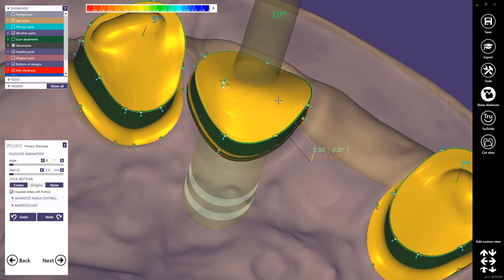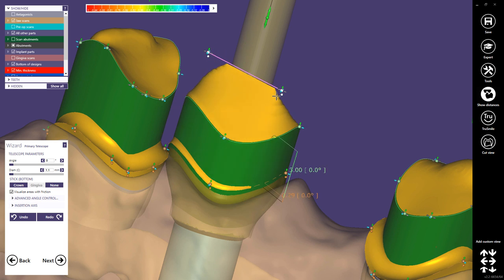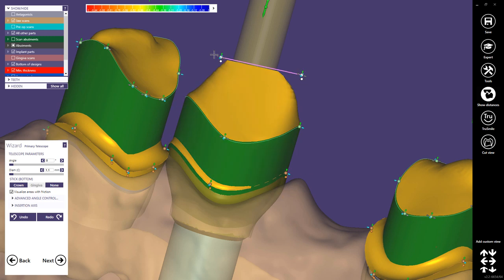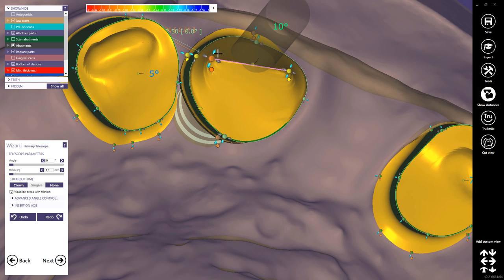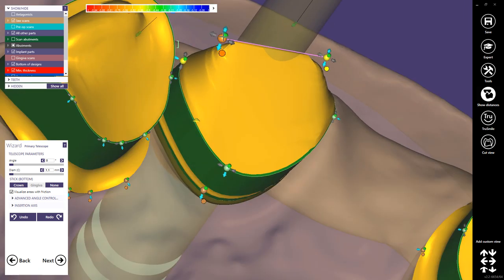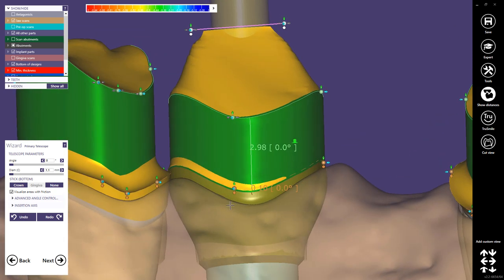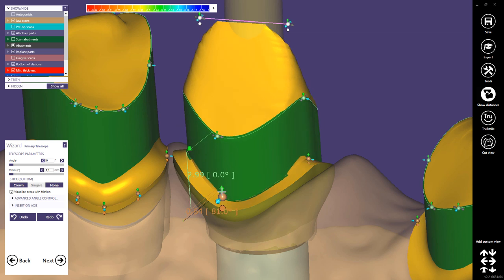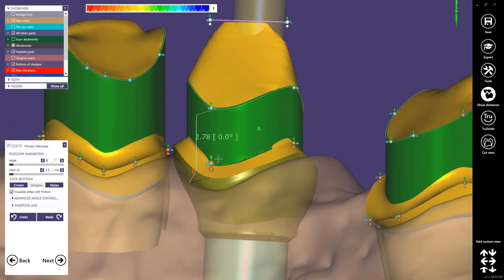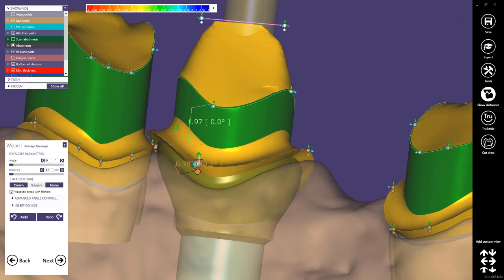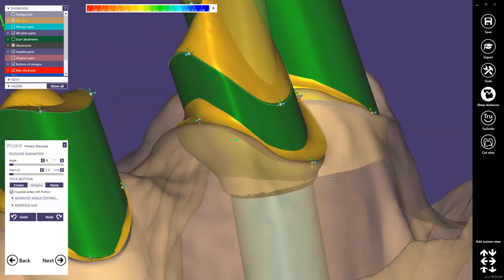Replace the curve with a two-point curve, essentially a line, so you can easily design the core of your telescope. We'll finalize that later — now we just do the borders. As you see, I don't need to create any border at all here, because we created the border with the emergence profile. Otherwise we would have a second edge on this border. We can move the points completely down to make sure we have a correct shoulder.